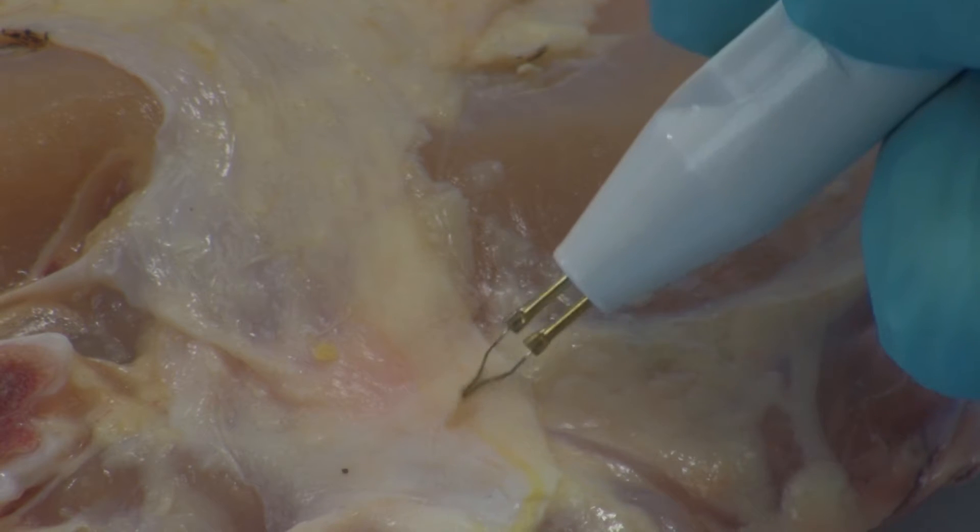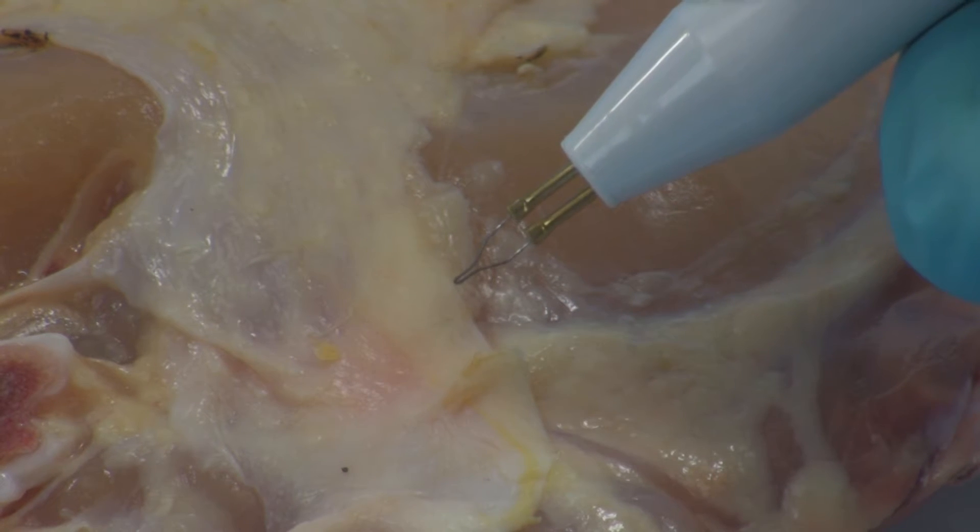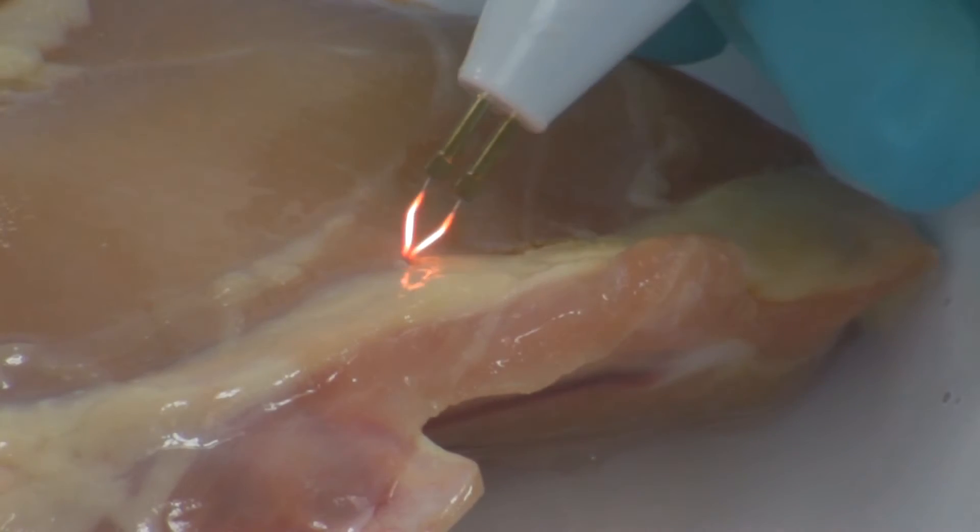Accidental exposure to cautery tip may lead to inadvertent burns to patient or user. Prolonged tissue exposure to cautery may lead to damage of adjacent tissue.